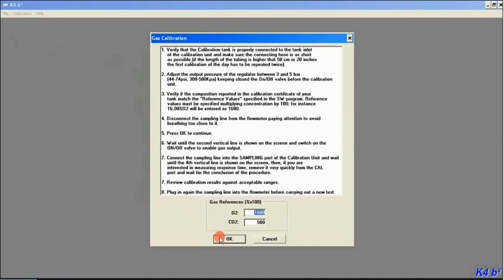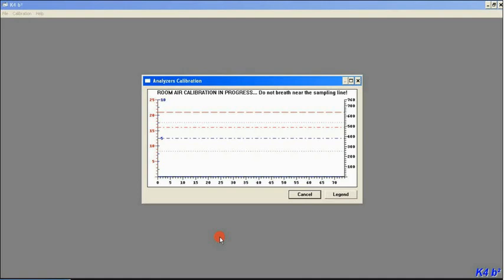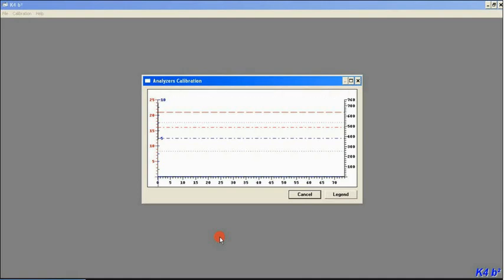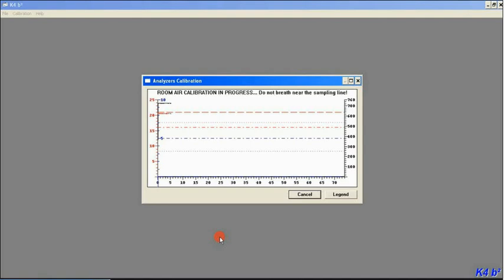We can click OK. Once we click OK, you'll see the graph pop up as it normally would. As you see at the top of the graph, it's doing a room air calibration right now and it doesn't want us to breathe near the sampling line, just the same as when we did an actual room air calibration.